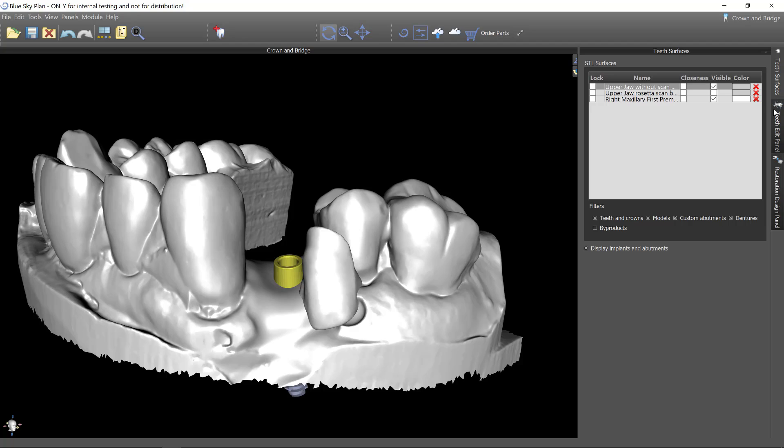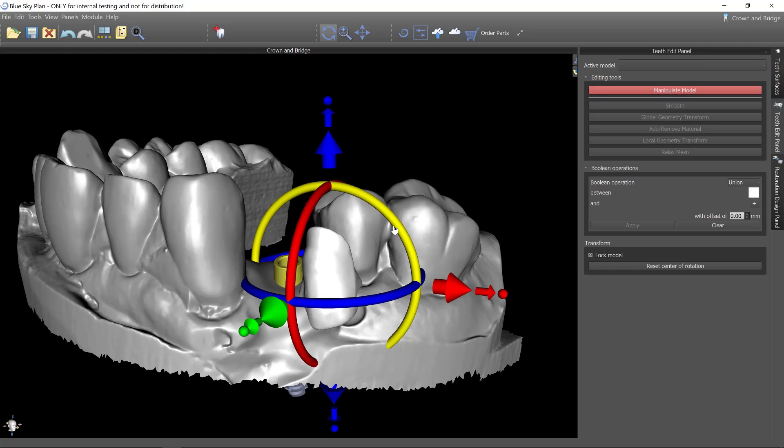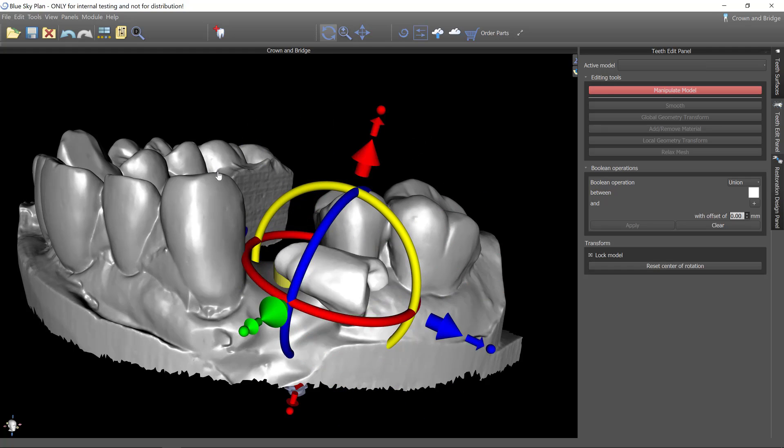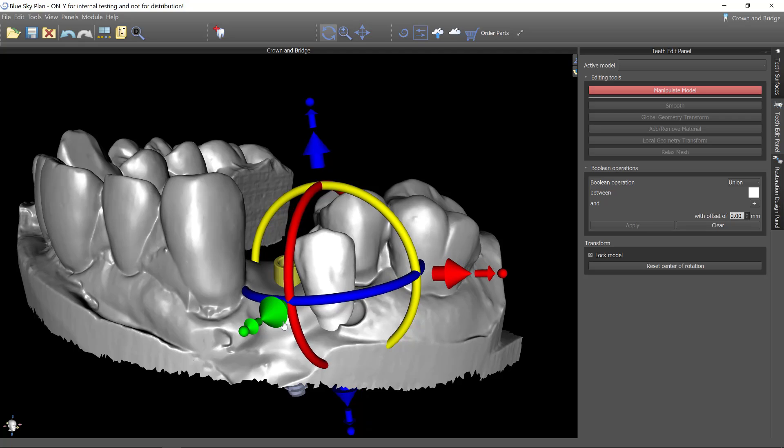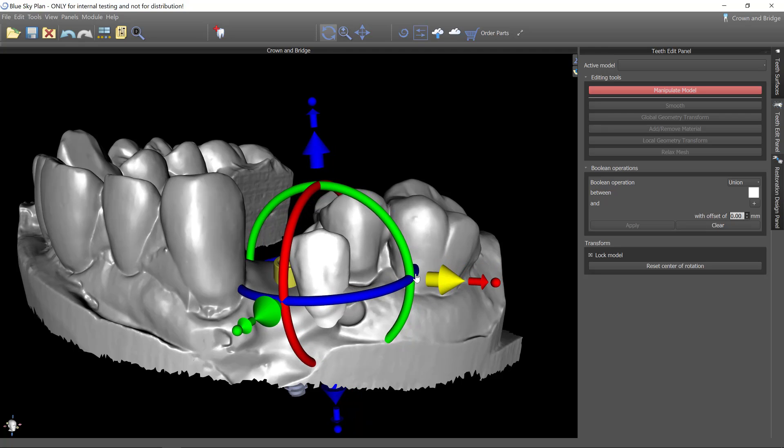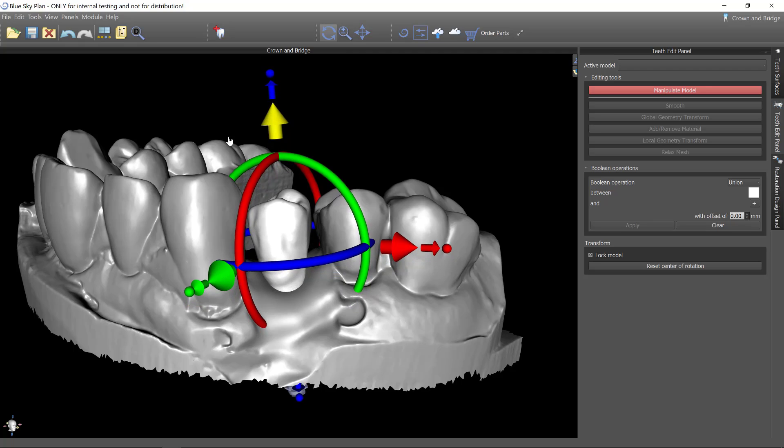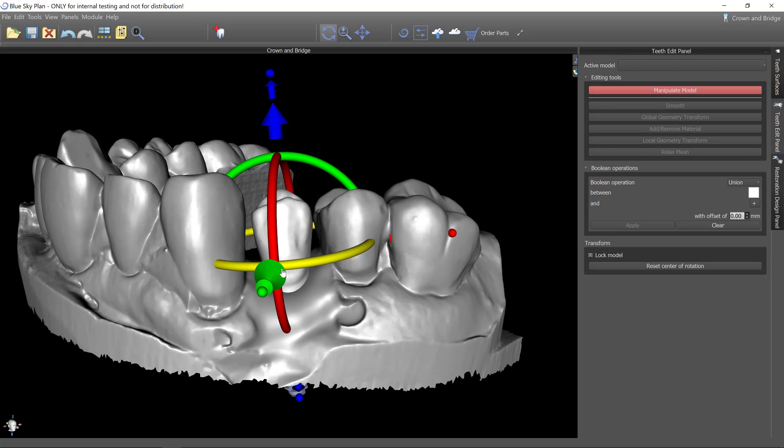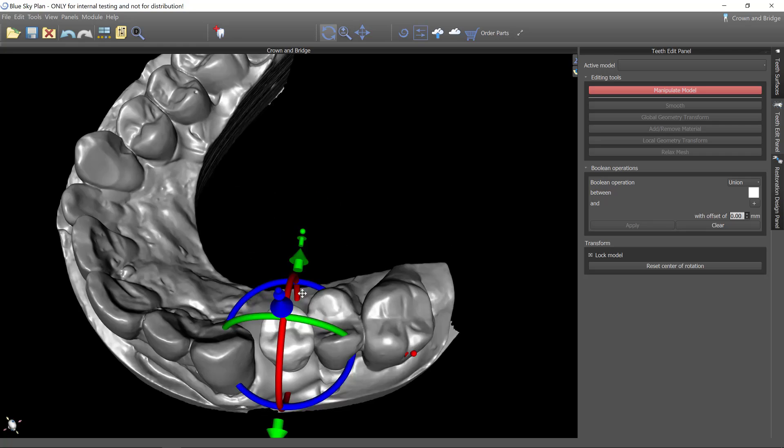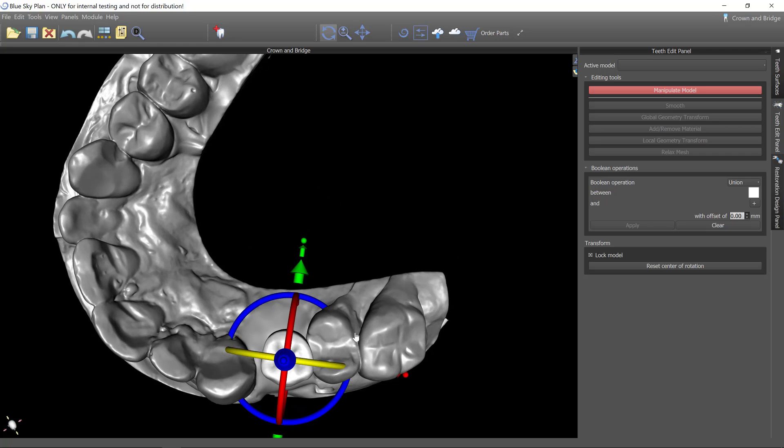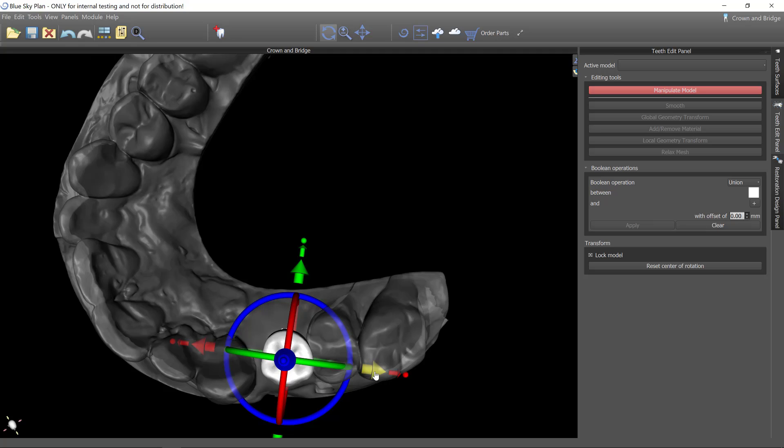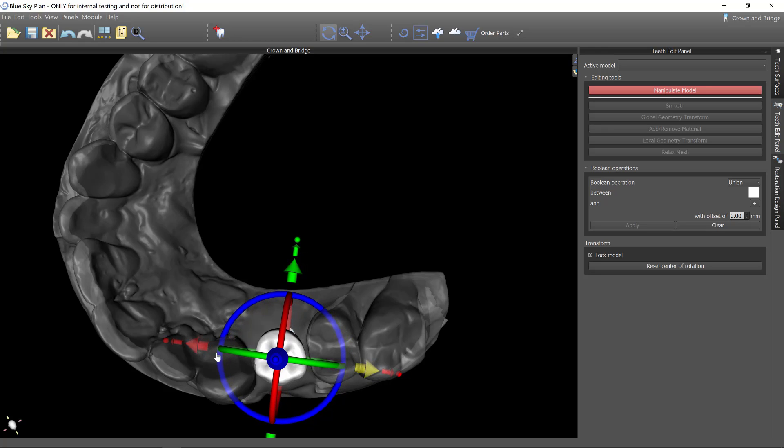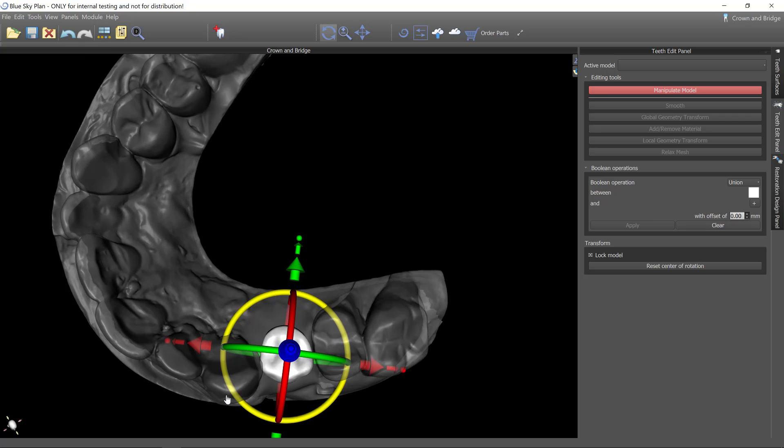Now I can reorient this. I'm going to manipulate model and let's lock the overall model so that I don't hover on that and get the rotation rings and accidentally knock that out of position. So I'm going to pull this up into the center and rotate it into the right axis. If you can't see your rings you can turn on the transparency of this model and that will allow you to pull this in more appropriately.